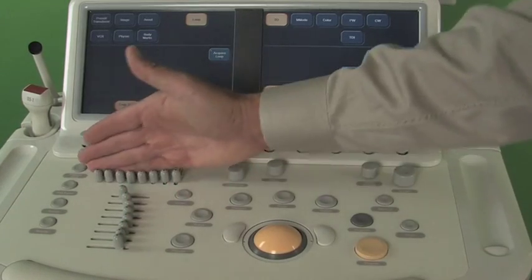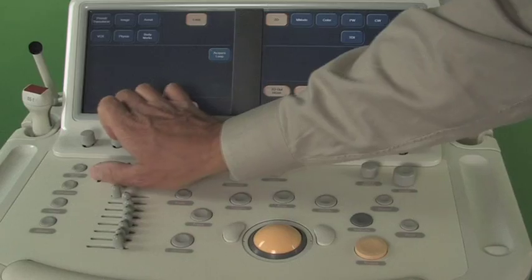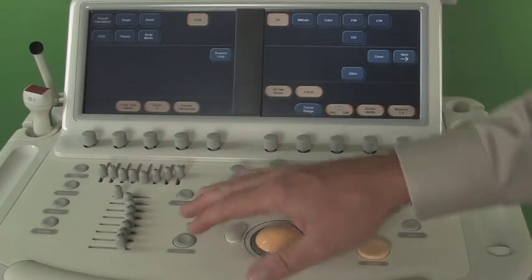TGCs and LGCs, or lateral gain control, here. So you'll use all those all the time.